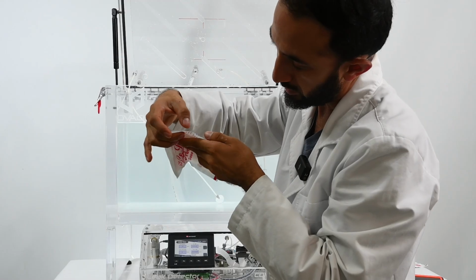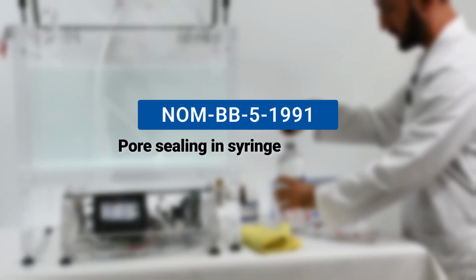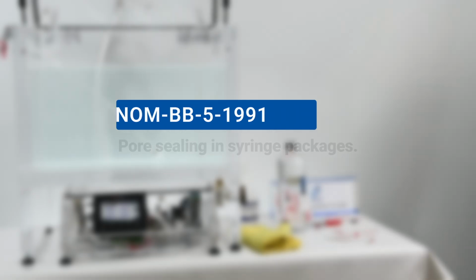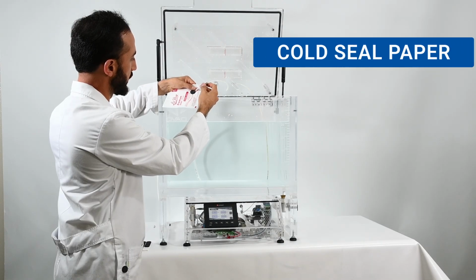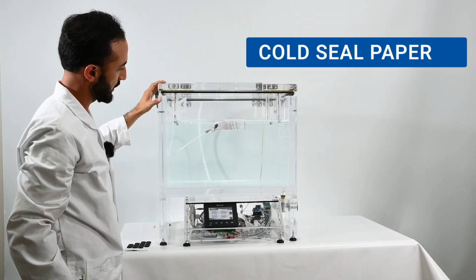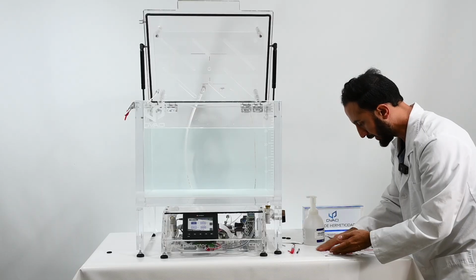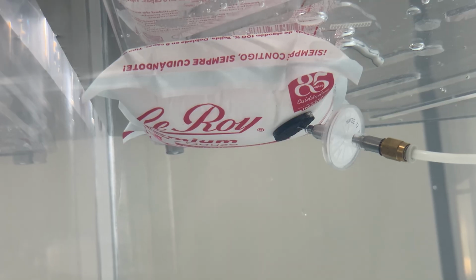If your setup doesn't allow you to use the recommended blocking agent, there's the option to use glycerin, as indicated by the official Mexican standard NOM-BB-5-1991, to seal the pores of syringe packaging. Recently, a client sent us samples of gauze packed in cold seal paper, so we could help them define the appropriate testing method. In this case, the hand sanitizer didn't work properly as a blocking agent, but when we tried glycerin, we got excellent results.